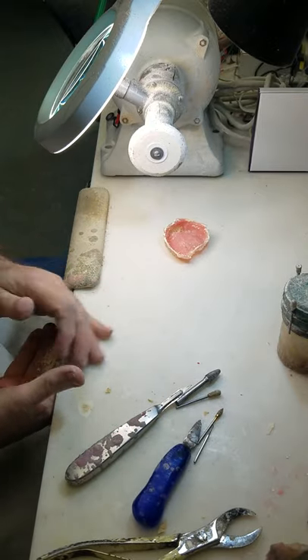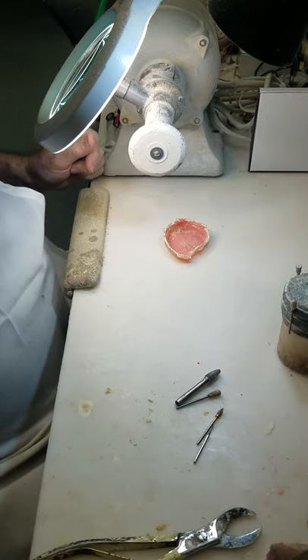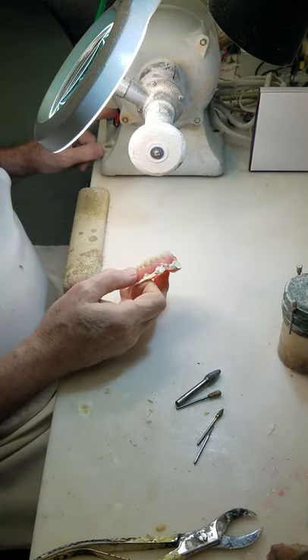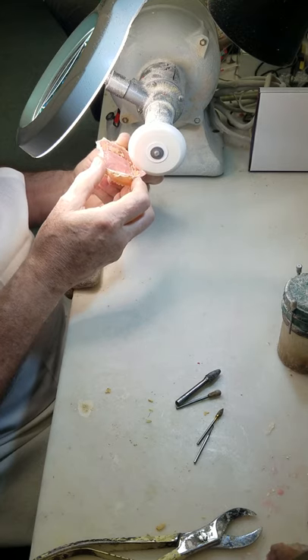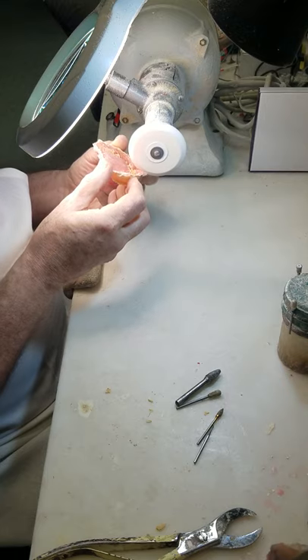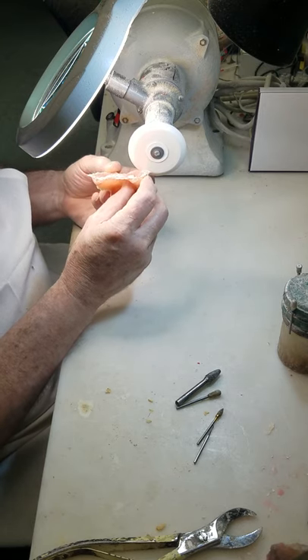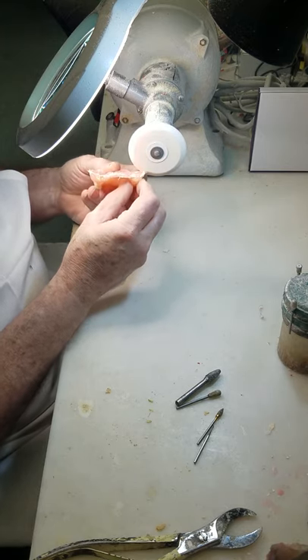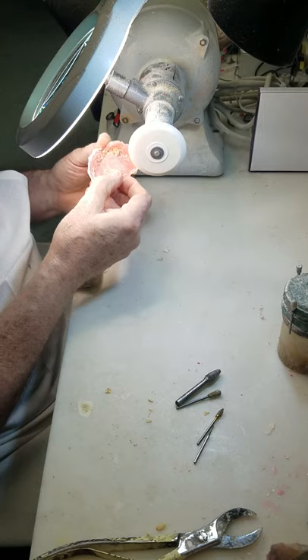I'm going to set a timer just for funsies. I have my Big White Wheel. I make one cut going for the depth that I want, which is what I like to call my Dr. Pepper cut. You find the depth of the trough and you cut down to about somewhere between 12 o'clock and 2 o'clock — so you're not at the depth of the top of the sulcus, you're just below it.